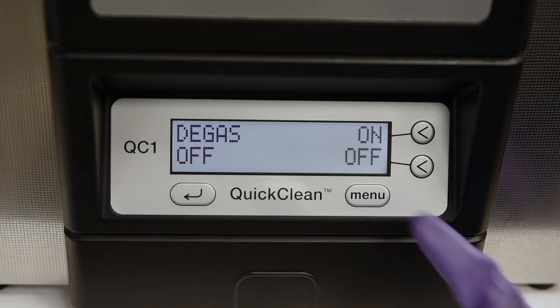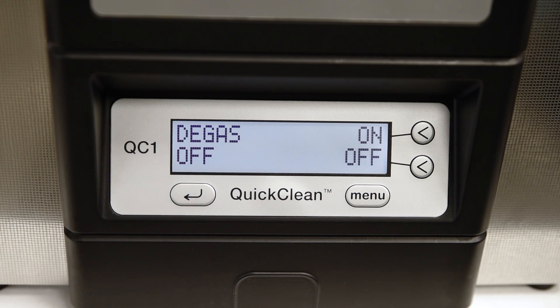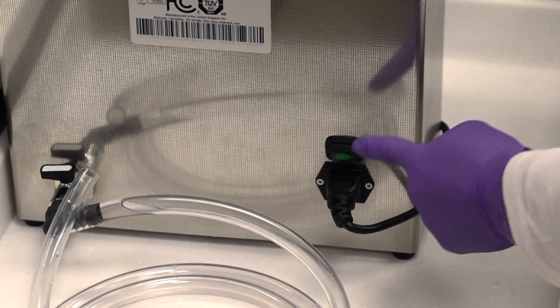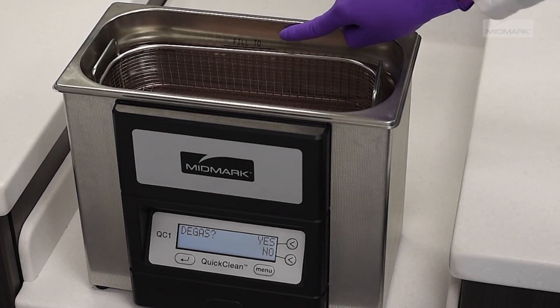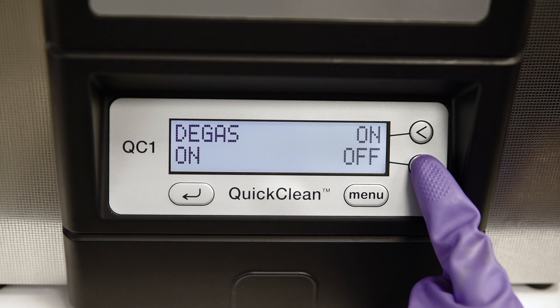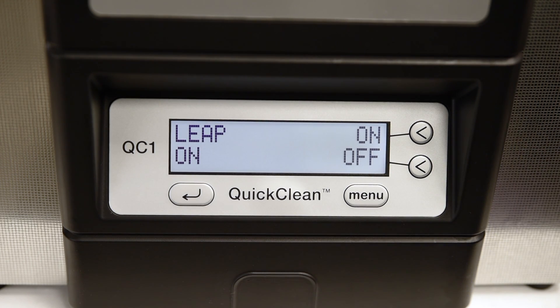Next is the degas setting. Your ultrasonic unit provides the flexibility to prompt you to run a degas cycle prior to every cycle or only at set times. Your ultrasonic degas function is factory set to off. The off setting means that you will only be prompted to run a degas cycle at the following times: when the unit is powered on, when you change the solution, or when the liquid level has fallen below the fill-to line. Turning the degas function to on means you will be prompted to run a degas cycle prior to every cycle. Use the on-off keys to set the degas function to your desired setting, then use the menu key to move to the next screen.